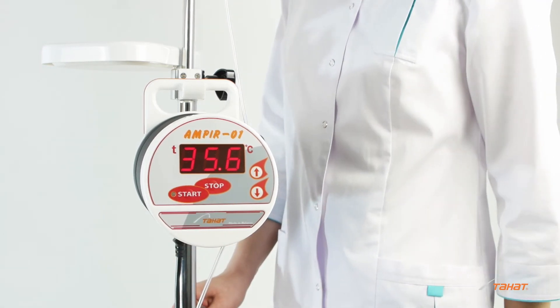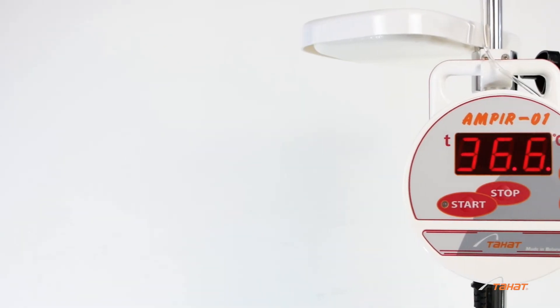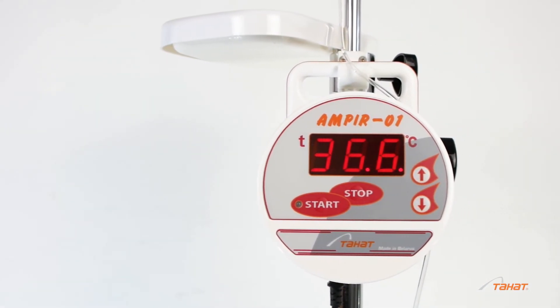Warming will take about three minutes. When the set temperature is reached, the device will automatically maintain it.